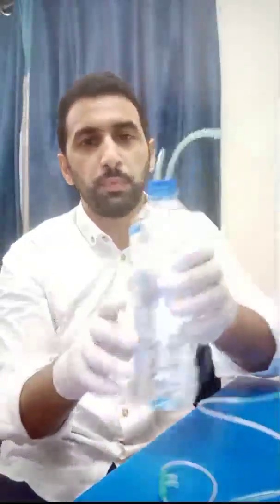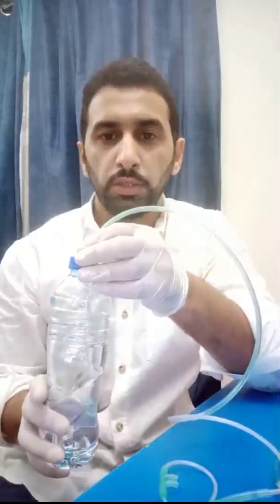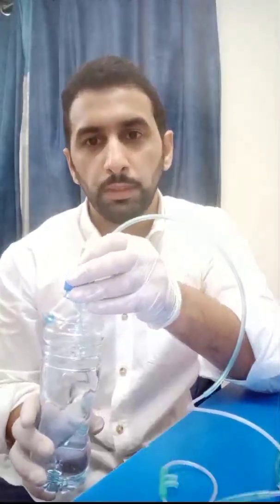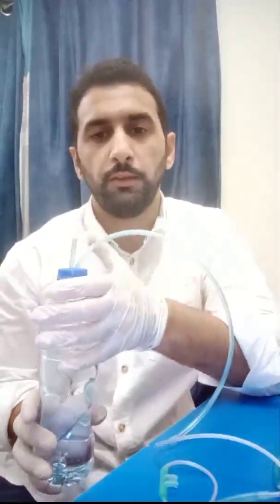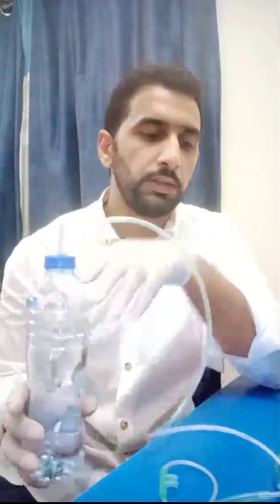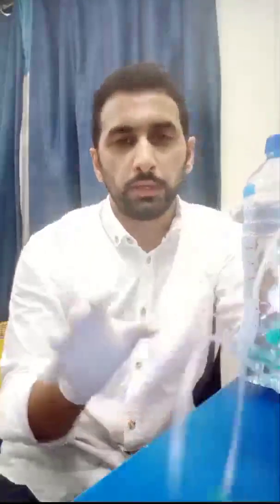PEEP is generated by the water in the bottle. We start by giving the patient a PEEP of five centimeters of water. To step up, increase PEEP from five to six, up to eight centimeters. While weaning off, you can decrease it accordingly.